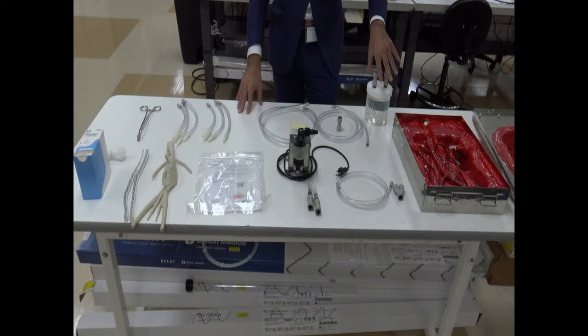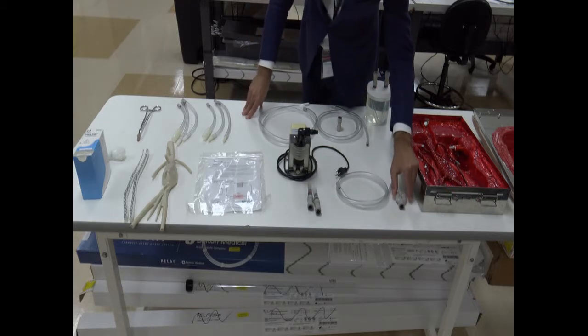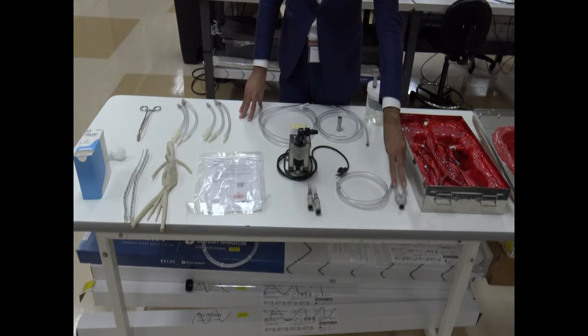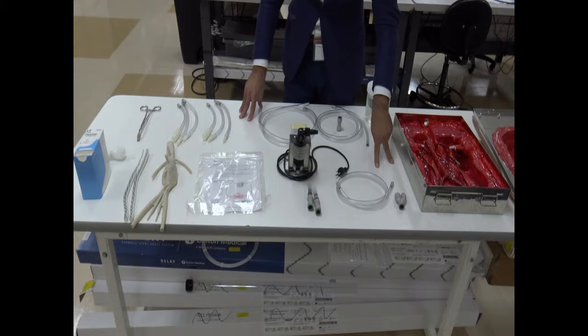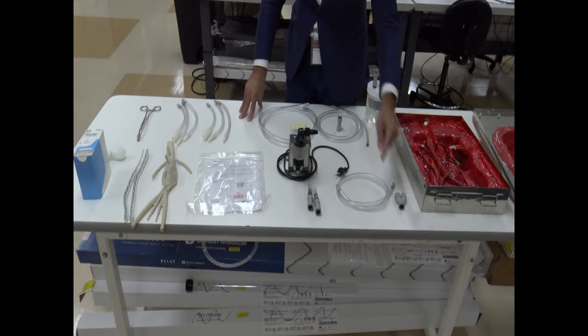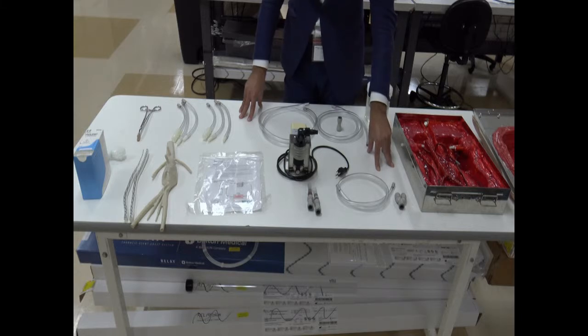components. We have this reservoir which is going to be filled with water, so we can run our open surgical simulator by pump. Then we have this bifurcated, Y-shaped flow line that is going to be matching every single one of the femorals. This is the tube that is connecting the Y connector to the reservoir. We will see it later.